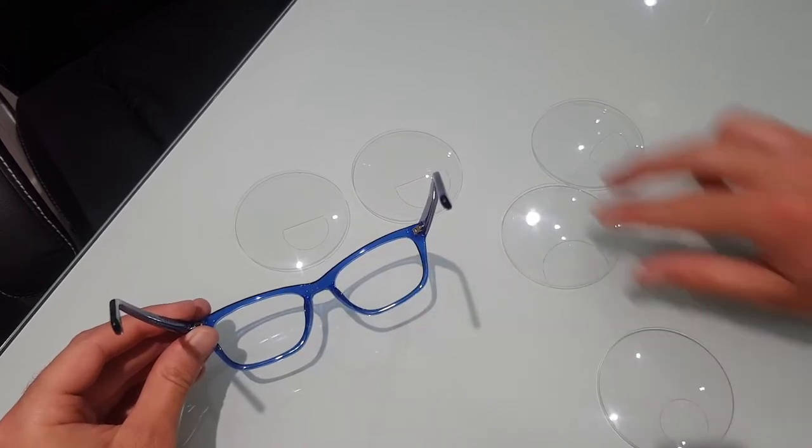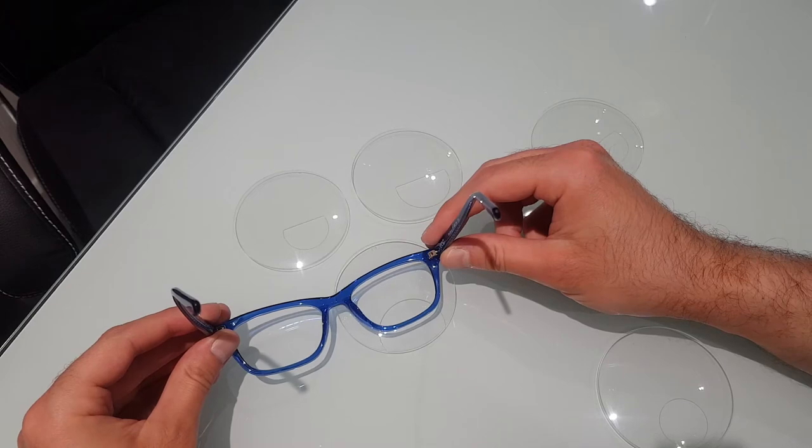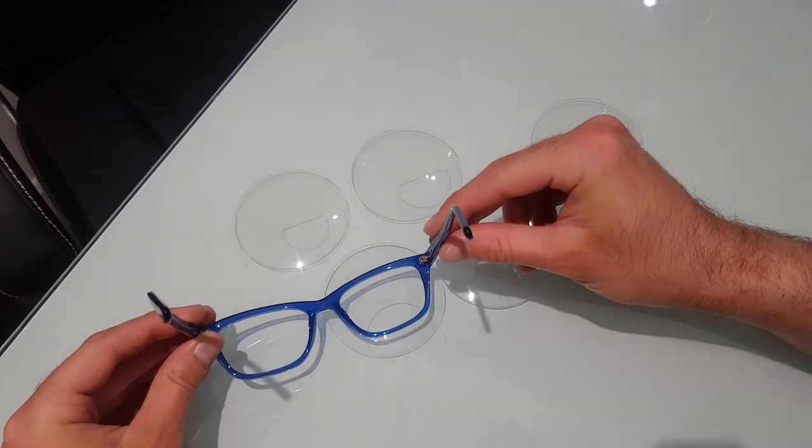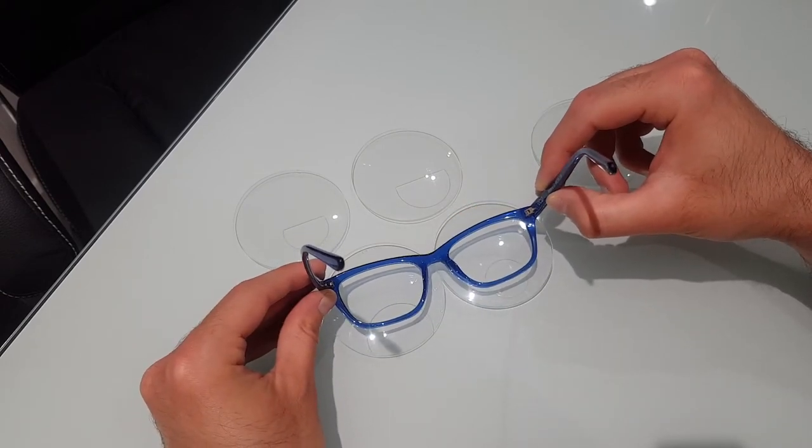As an example, if you had a round 38, same sort of height position, you can see that there is obviously a difference there to how much reading area you've got.